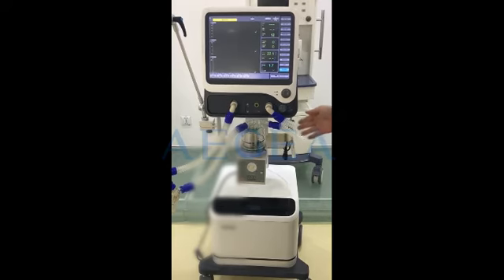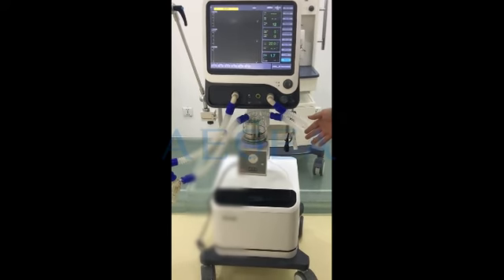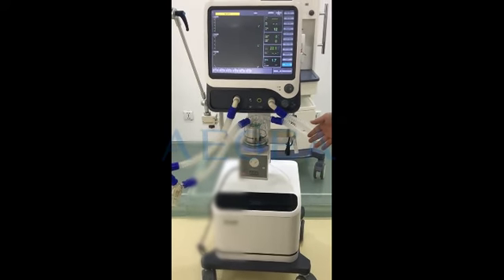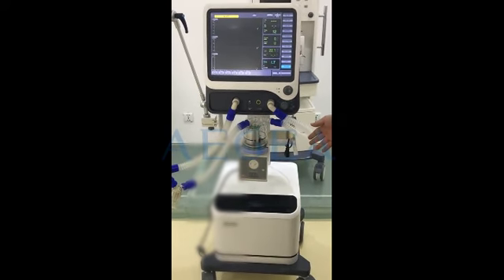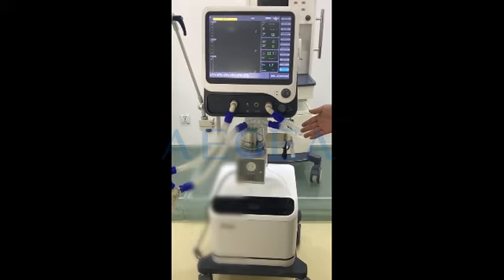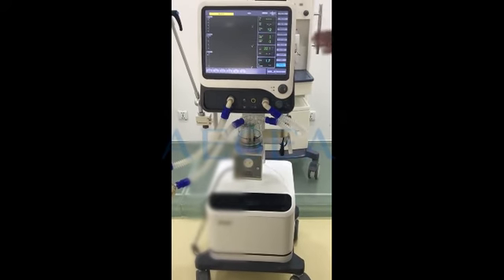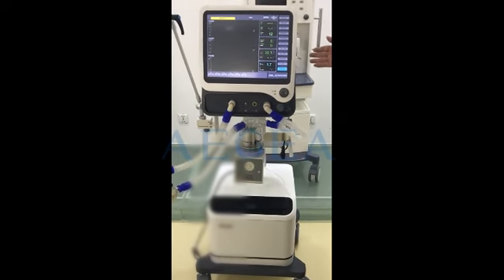If there is no gas from the central supply, the air compressor can automatically start, so it can prevent any harm to the patient. This is the main construction of our model.